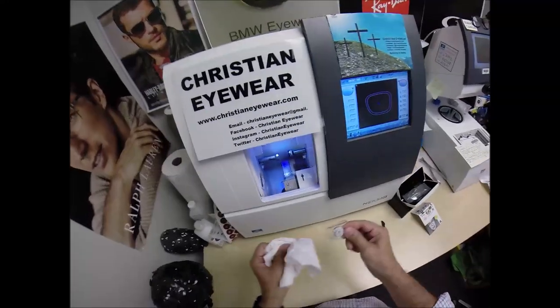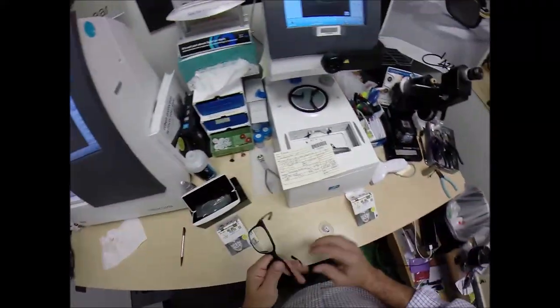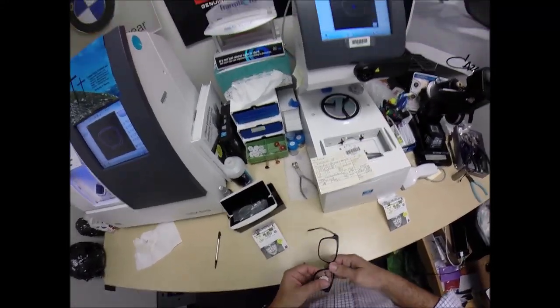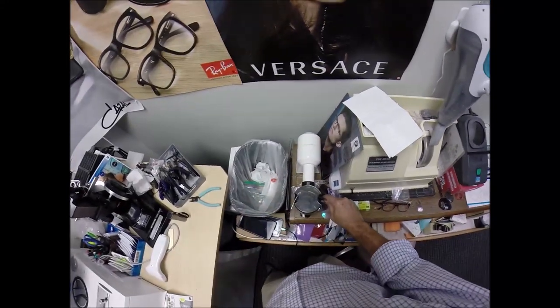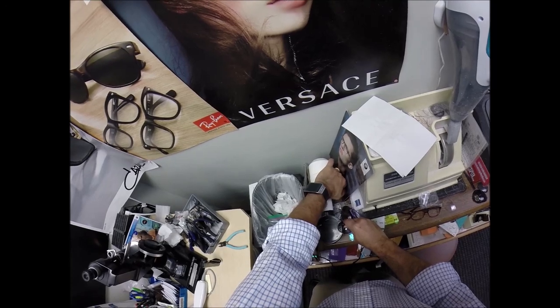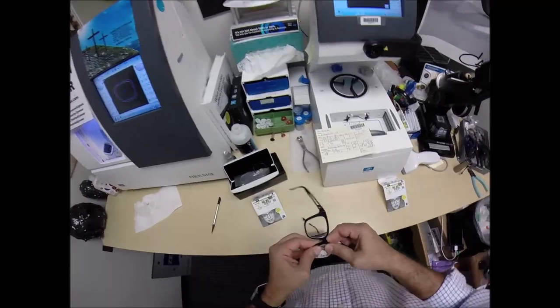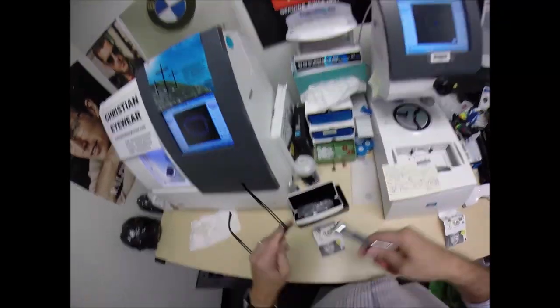Let me dry everything off there and run my thumbnail around to make sure it's all off the lens. Let's see if it'll snap in on its own — I doubt it, I'm probably going to have to use some heat. Just makes the plastic a little bit more pliable. We're going to tuck this in at the outside corners, press out the nose — there it goes, it snaps right in there. We're going to take the block off and pull the sticker away.